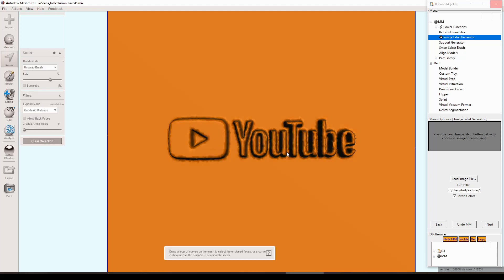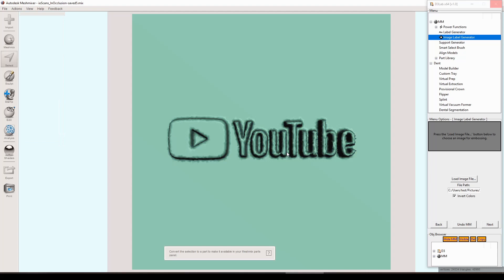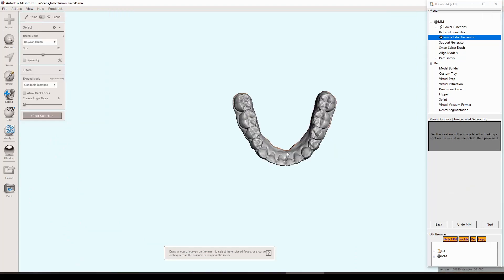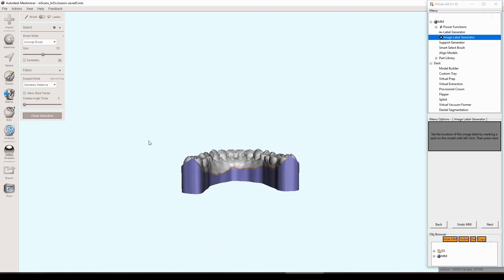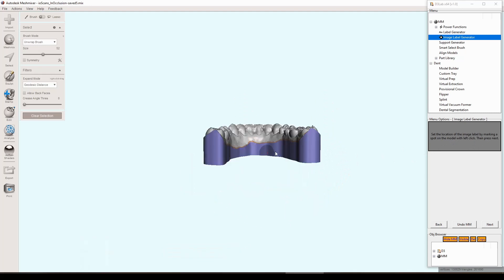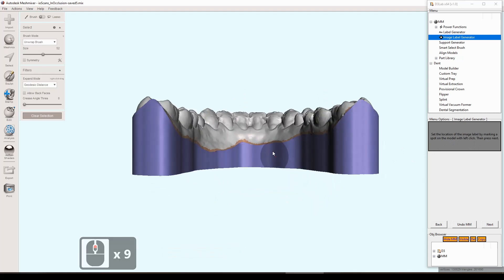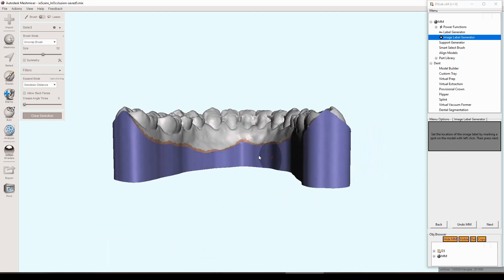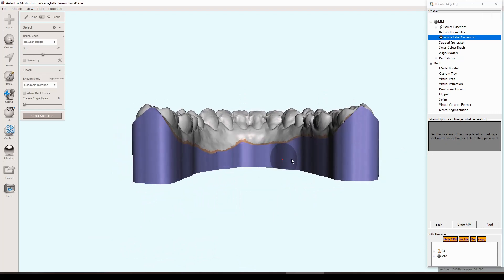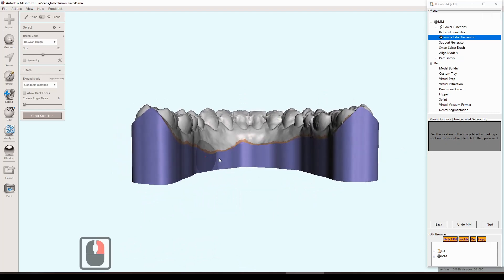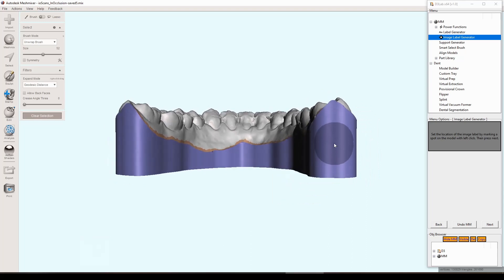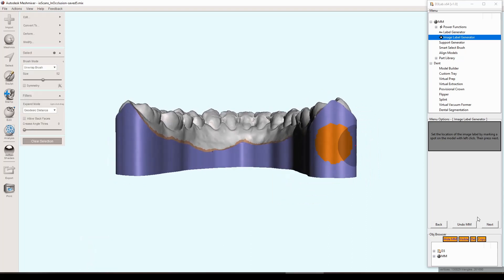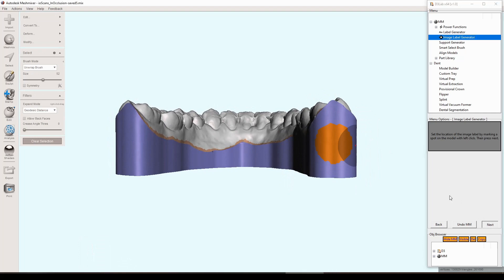You'll notice here that the logo that I used was kind of rectangular in shape, so in order to get this to look normal as an image label, part of the processing is making that into a square. So the top and bottom part of that were buffered with some blank area there. So the label itself went from a certain size to a little bit smaller because we had to add that buffer on the top and bottom. You need to keep some of those things in mind. You can alter the way your image looks to get the best results possible, but again this was just downloaded straight from the internet and just used on the fly.